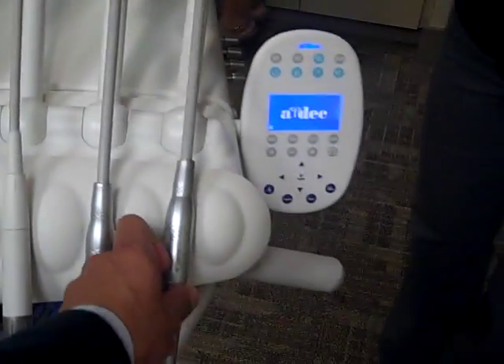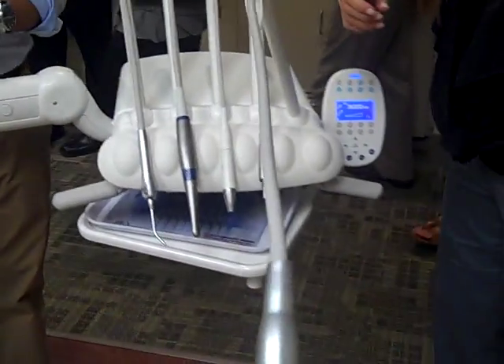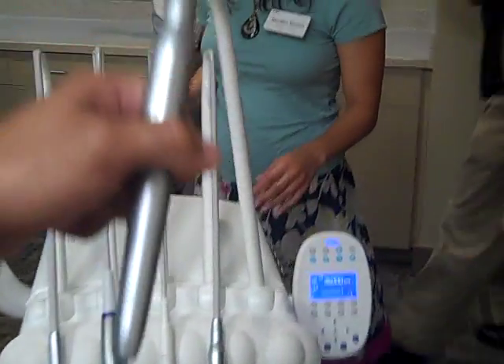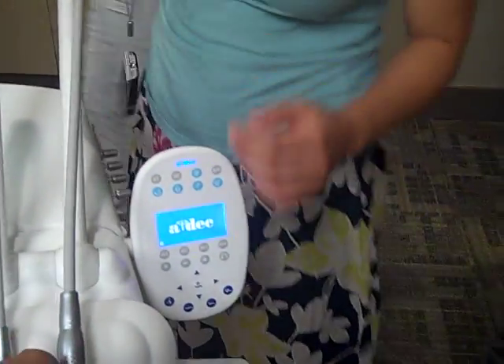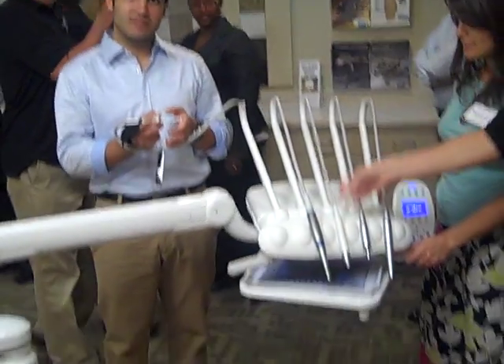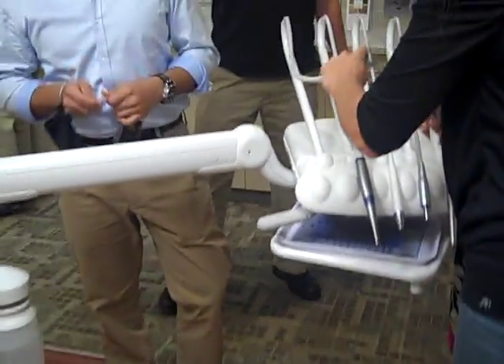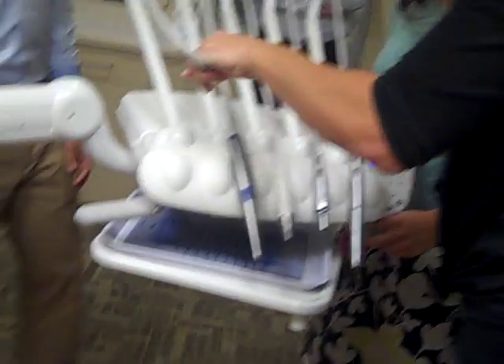Oh, this is awesome. Isn't that nice? Did you guys hit it on like those cords? Yeah, and then this just goes back. I've seen these. That's great. That's pretty cool. It's like a handpiece. That's cool. Feel the leather on this. That is plush.